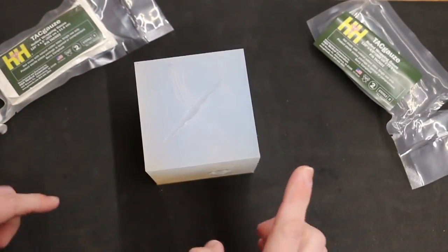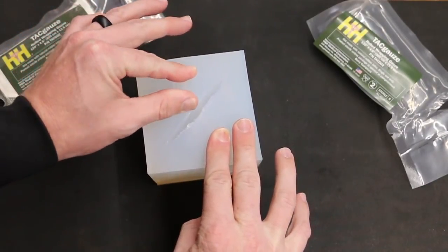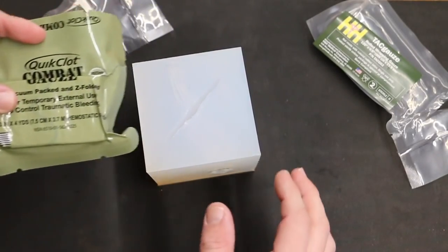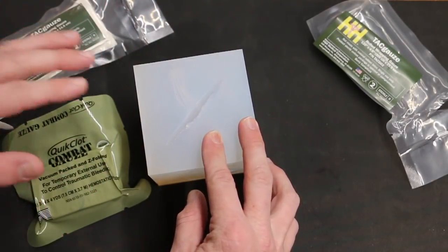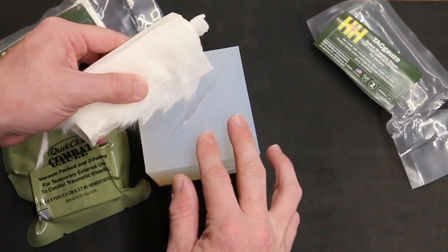Another option for this gauze is if you have a large laceration on someone's leg or shoulder — you could use combat gauze, Celox, or something like that to go in to the source of the bleeding and pack first, and if you needed some backfill to finish filling up the wound, you could use TAC Gauze for that as well.